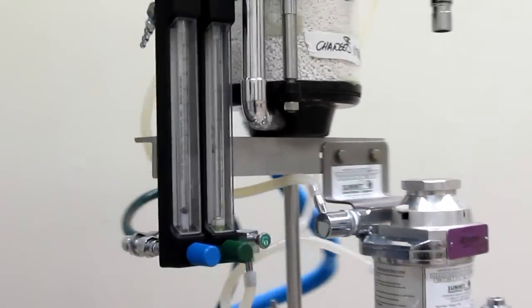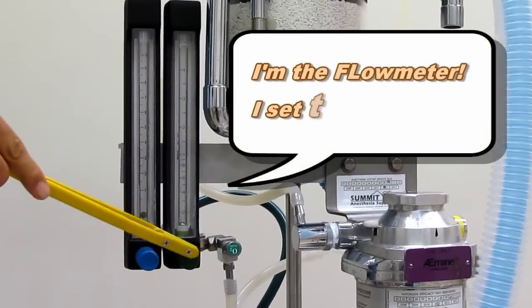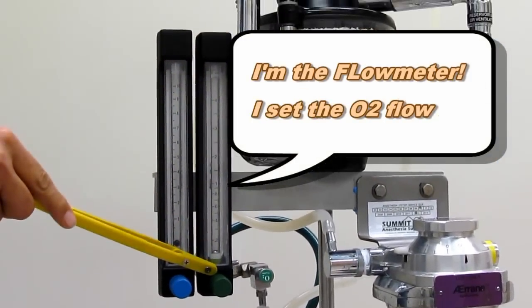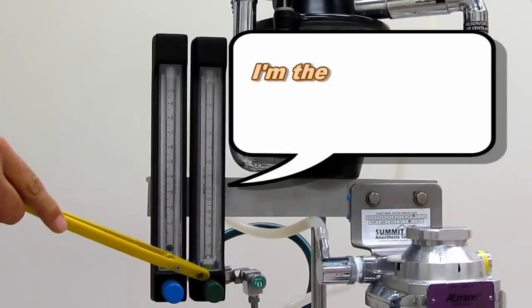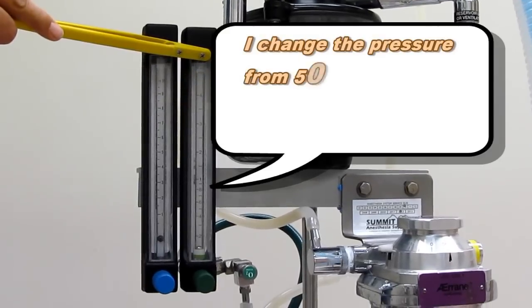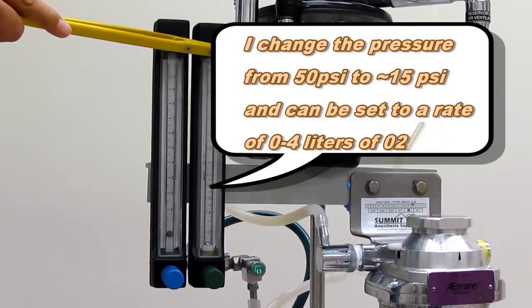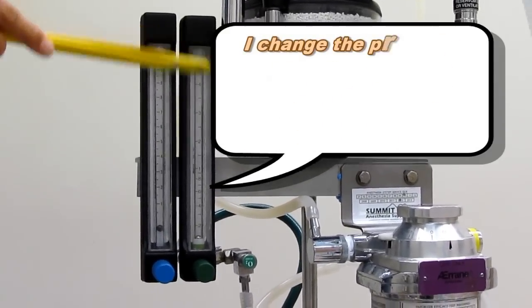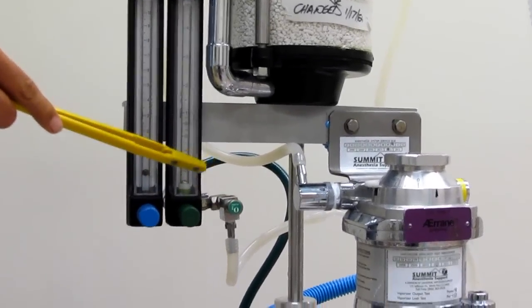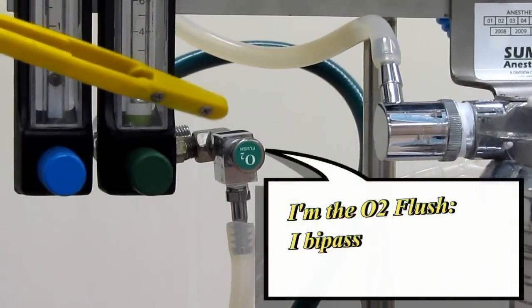From the pressure reducing valve, the oxygen rises up this green hose here and enters this component found here. From the front, this component is the flow meter. The flow meter has this green dial which allows us to set the oxygen flow rate to the rest of the machine. Now a couple things can happen here. We can continue through the flow meter, which would reduce our pressure from 50 psi to about 15 psi, or we can completely bypass the flow meter and the vaporizer by pressing this button right here.